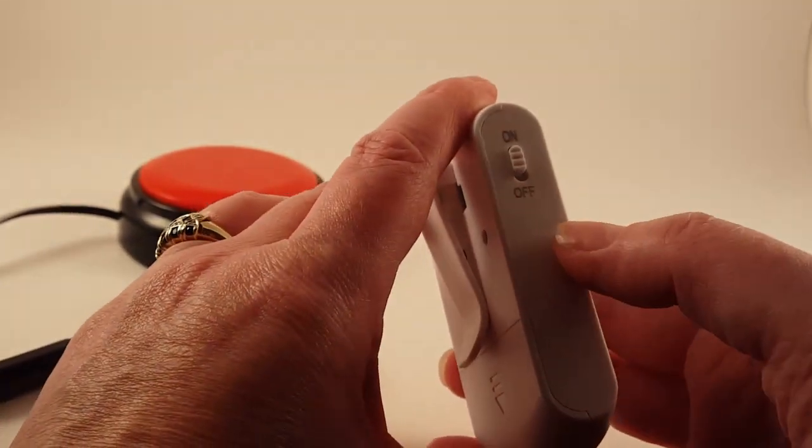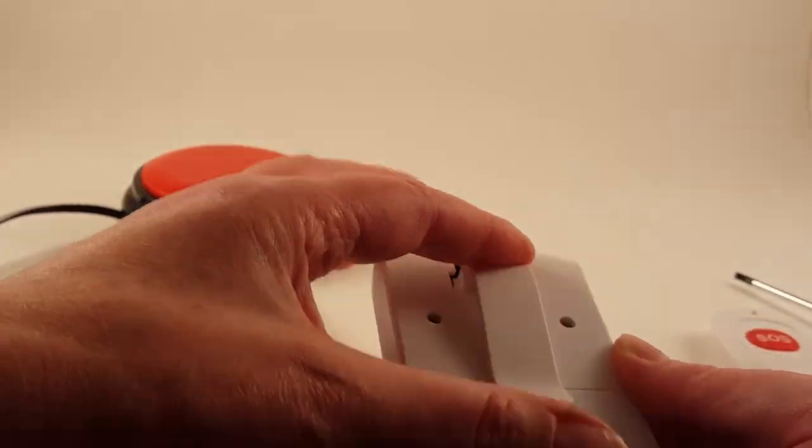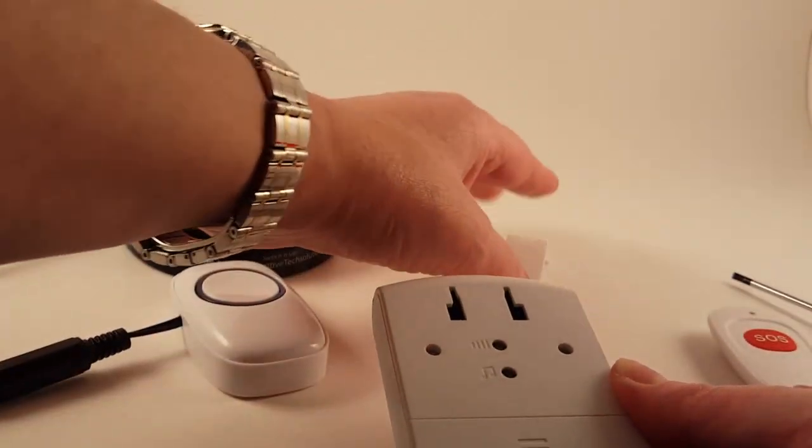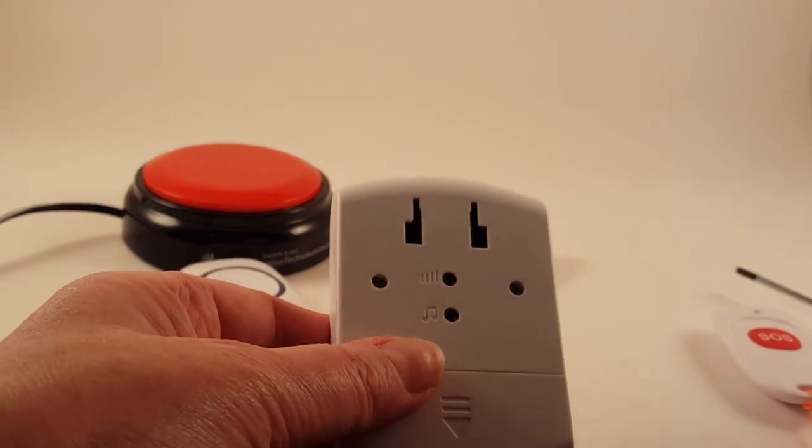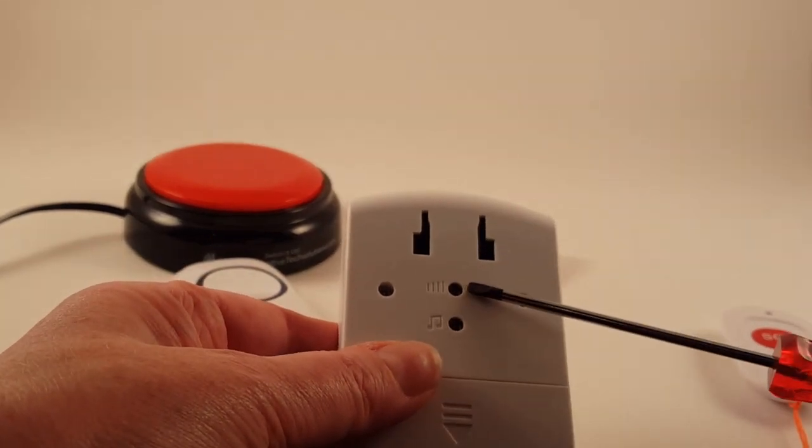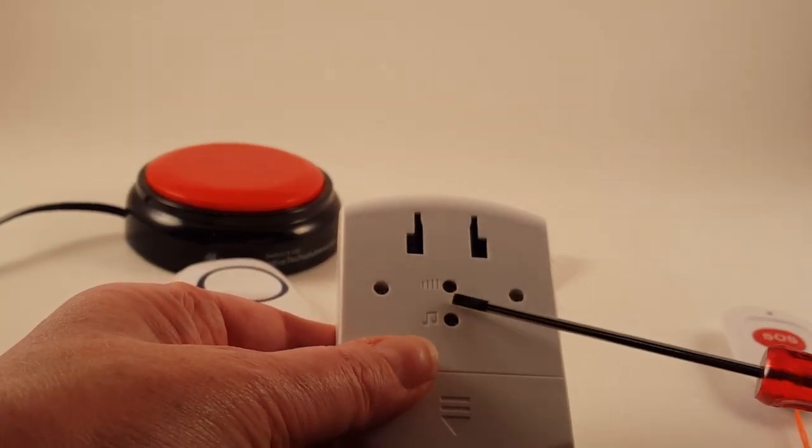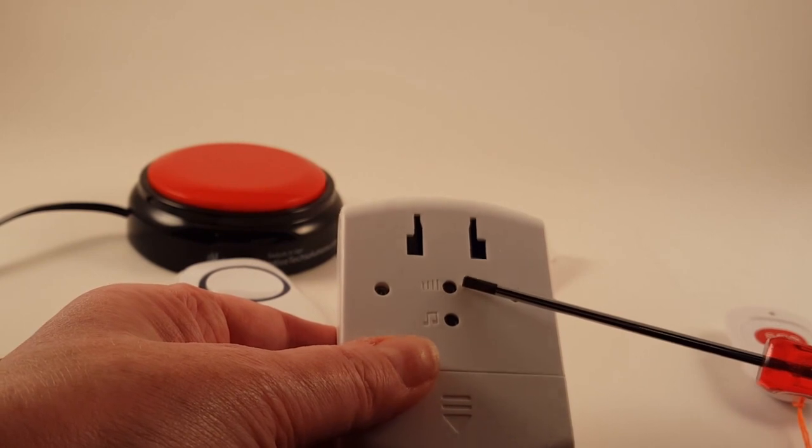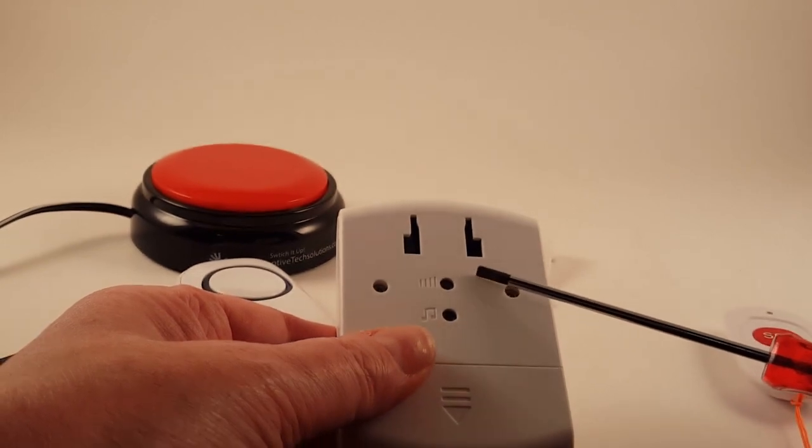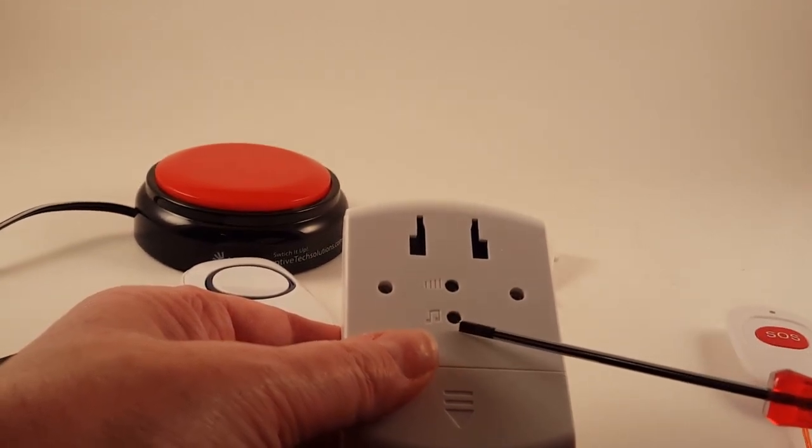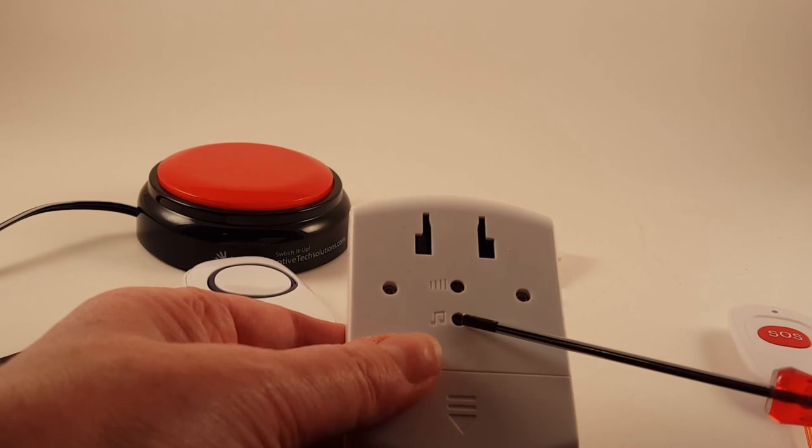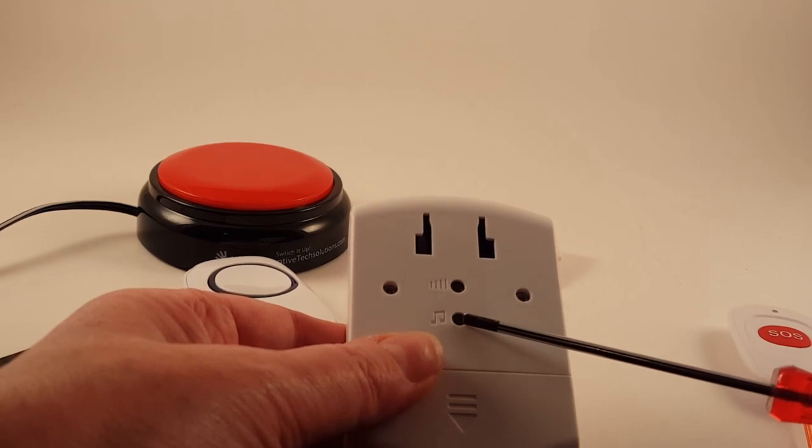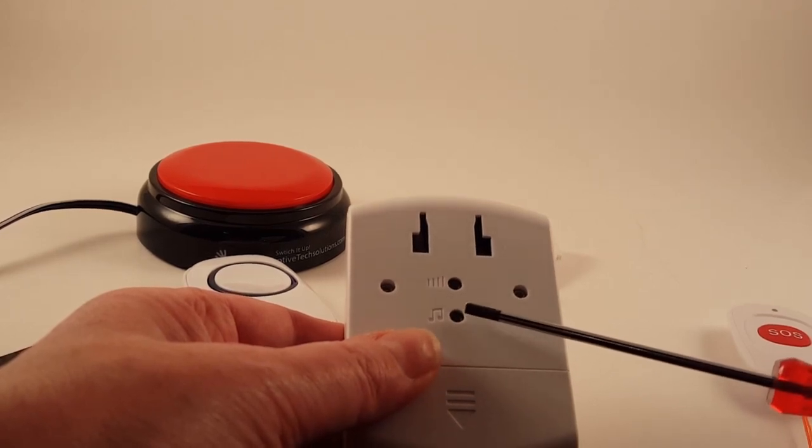Here on the side is your on and off, and if you push down on this, you can take this off, which is going to get you to the volume, which is right here. And again, like I said, it starts out very quiet, and then it goes up in volume from there. And then this bottom one here is going to be your chime, so you've got just a ton of different chimes that you can choose from as well.